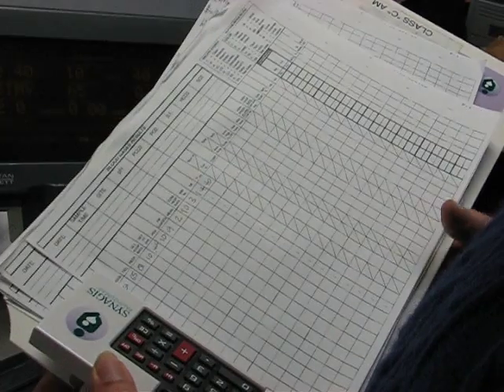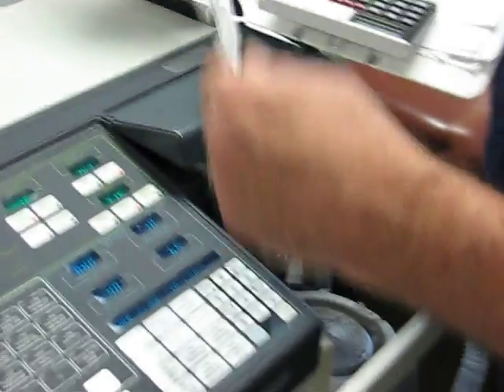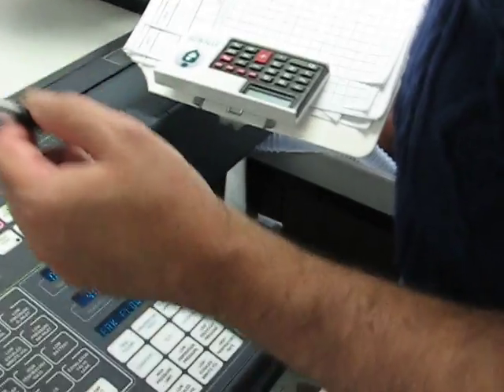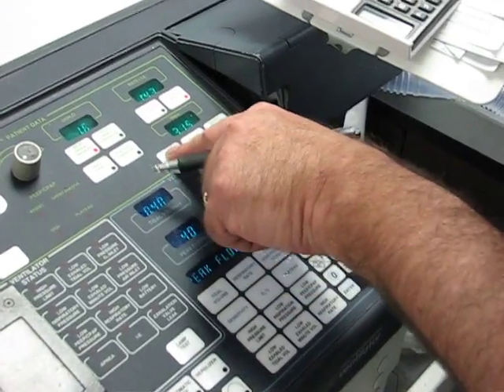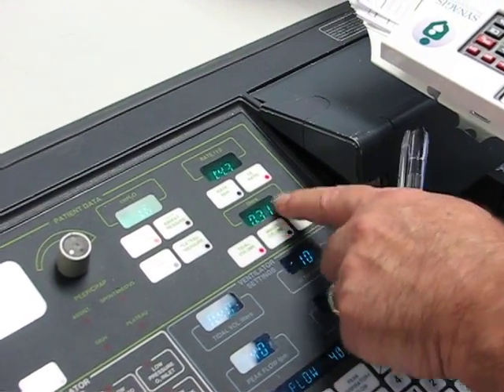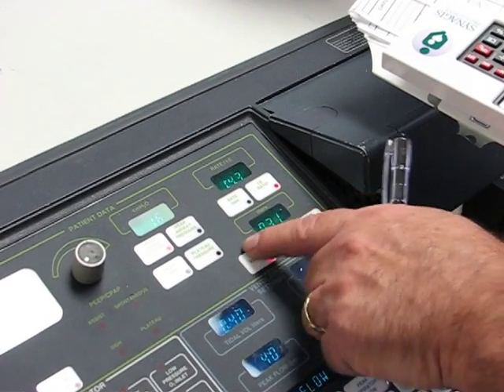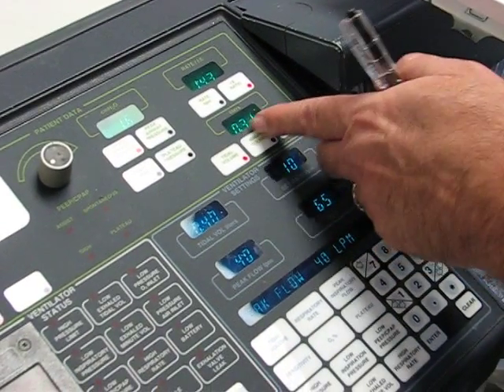Now it says spontaneous tidal volume. Patient is a dummy, so we know he's not breathing spontaneously. But if this was an actual patient, what you would do is go up here and hit your tidal volume button, and you're looking at the returns. As they come back, they're always about the same. Mandatory breaths would be about the same, so this is about 310.